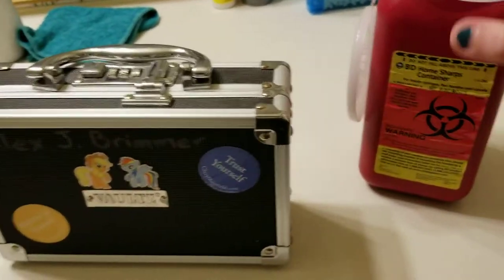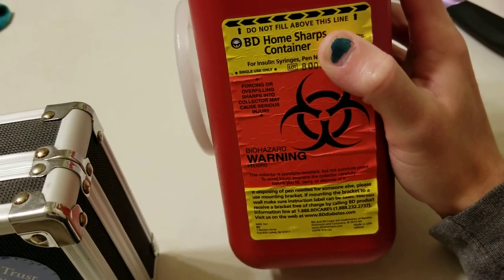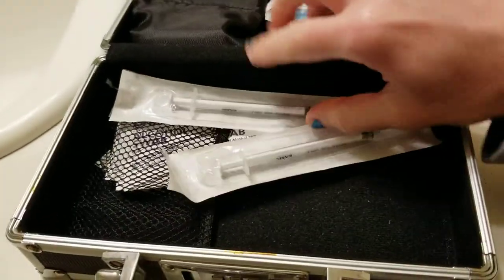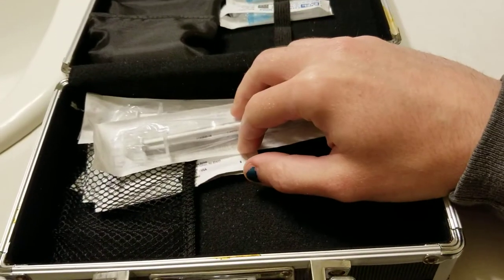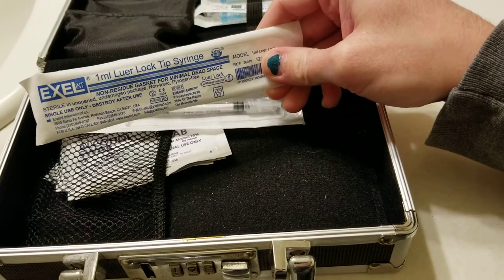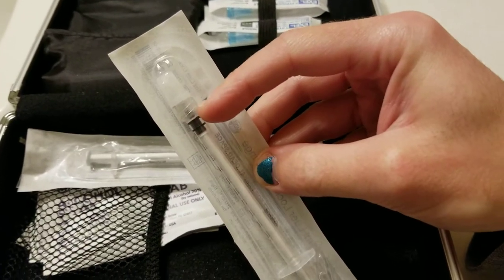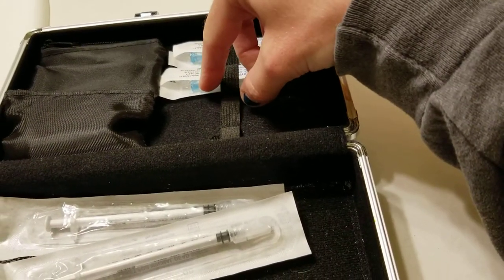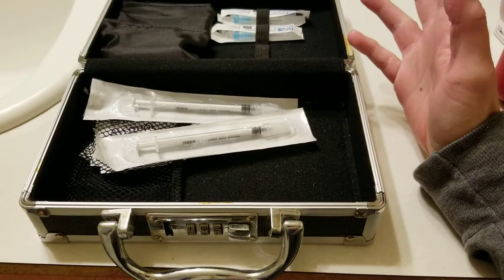You can get these at Walmart, and BD is a distributor — I think that's where my needles are from. I get luer lock tip syringes, 1 milliliter, which means the needle gets screwed onto the top. You can see there's threading on it, and you get the corresponding needles with the luer lock end so they just screw on.